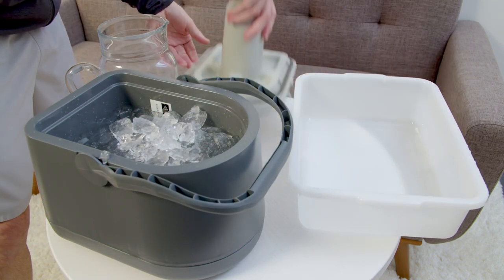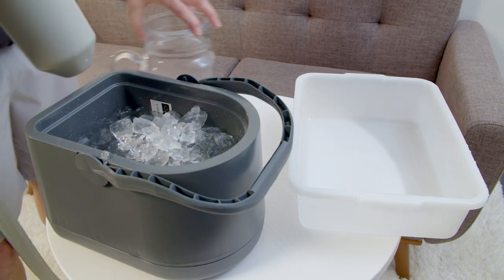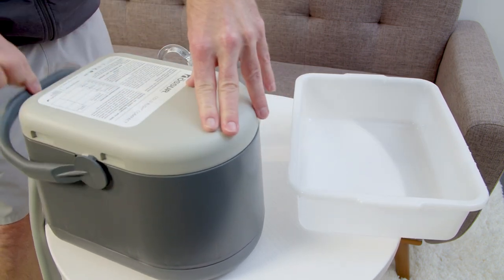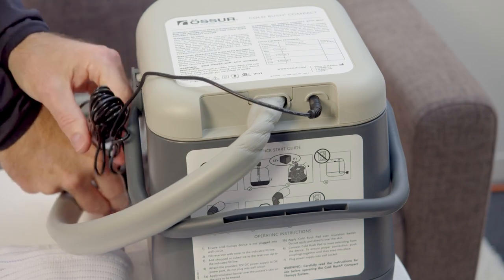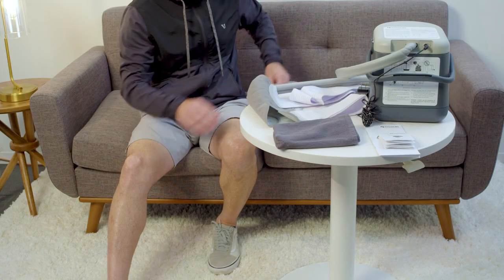Close the reservoir with the handle in the open position. Press the lid firmly onto the unit, making certain that the lid is in full contact with the vessel and the seal is engaged, then pull the handle into the locked position. Attach the provided 12V power supply to the DC power port, but do not plug into the wall.